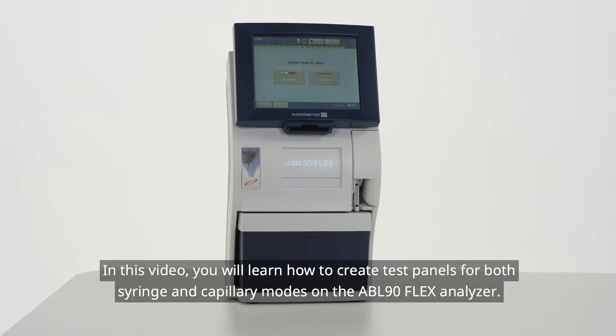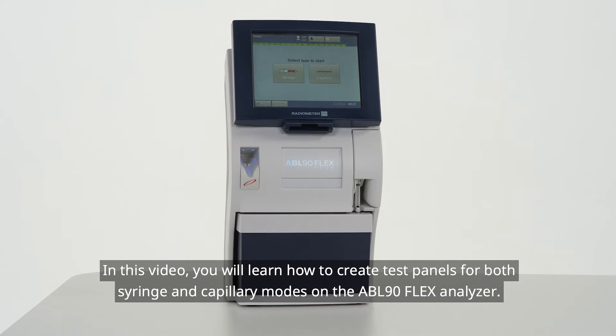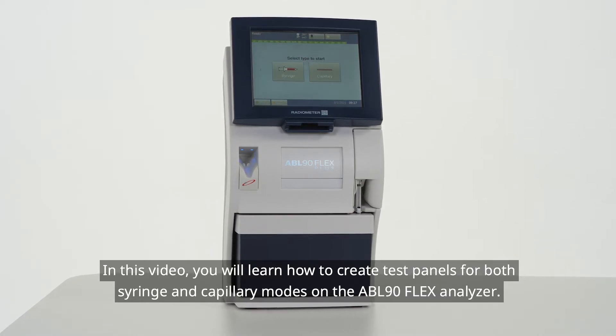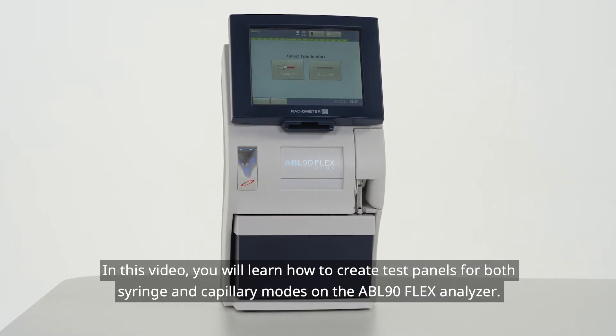In this video, you will learn how to create test panels for both syringe and capillary modes on the ABL 90 Flex Analyzer.